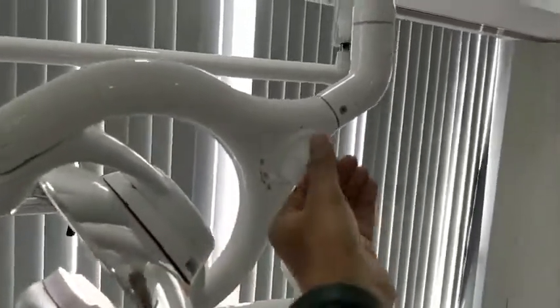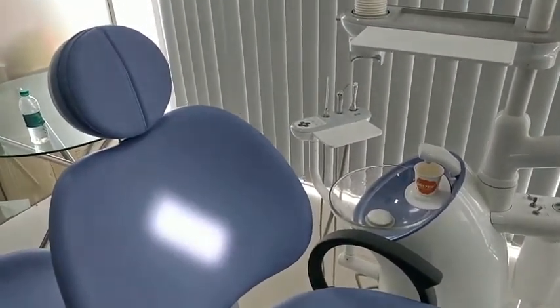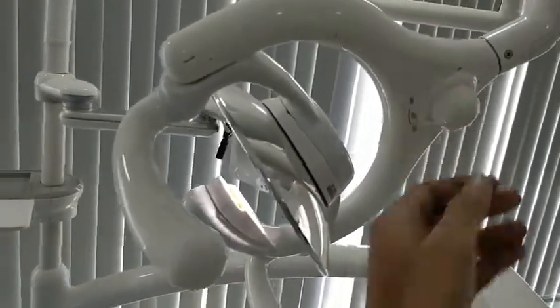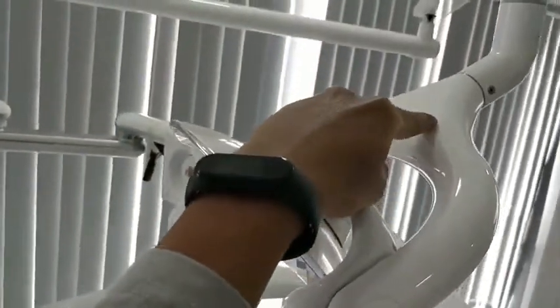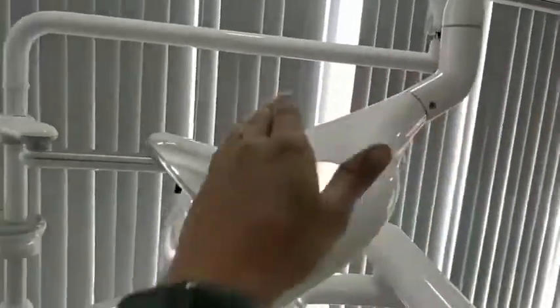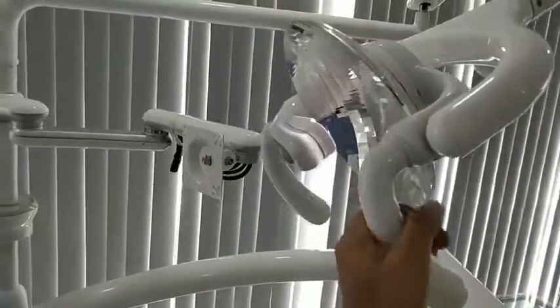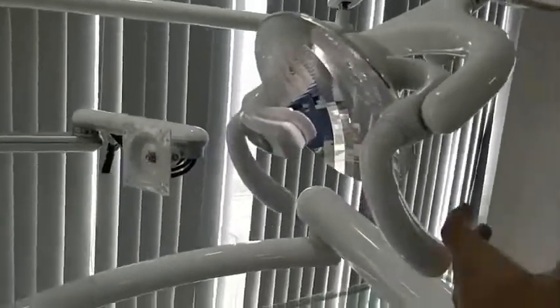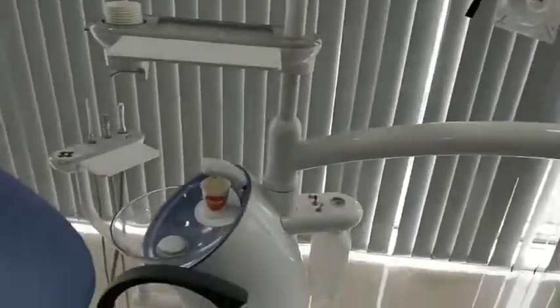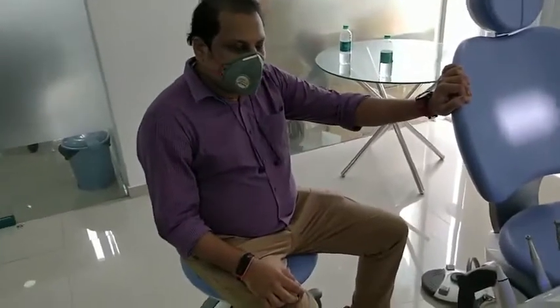The yellow light mode is therefore mostly used during aesthetic composite restorations. There is also a knob to control the intensity of the light. In the new model, a hand-wave sensor turns the light on and off. The light intensity ranges from zero to 35,000 lux, which is quite high for a dental chair light.